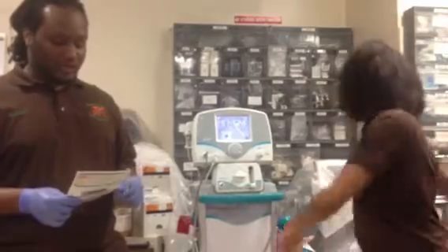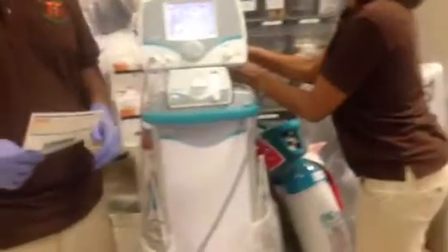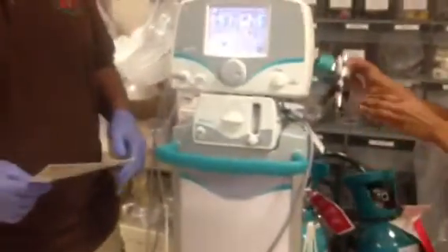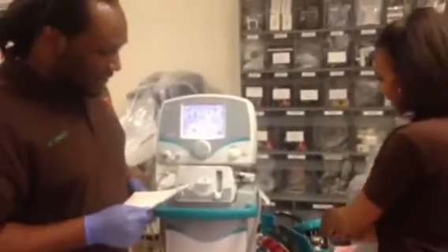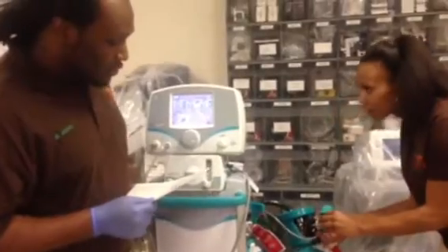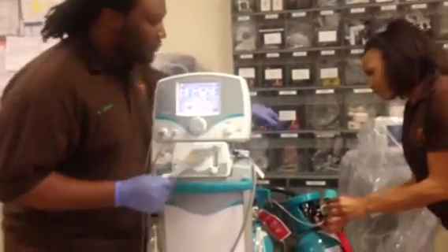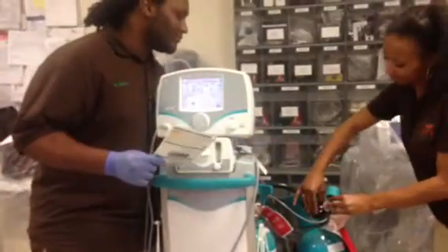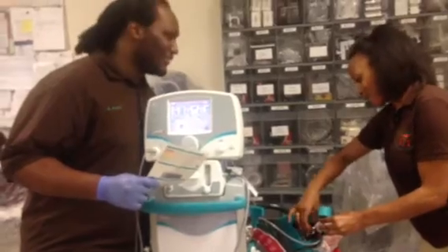The first thing we're going to do is check the white plastic tip on the regulator. It looks white to me. Looks pretty white to me too. So now we're going to take that actual tip and connect that into the actual tube. From there, we'll also make sure we check our high-pressure regulator, which is this object here. It's definitely a high-pressure regulator.